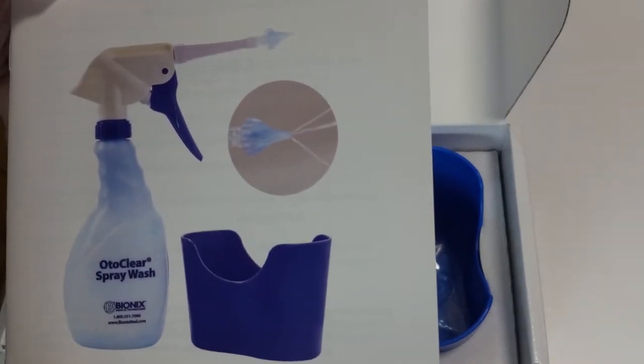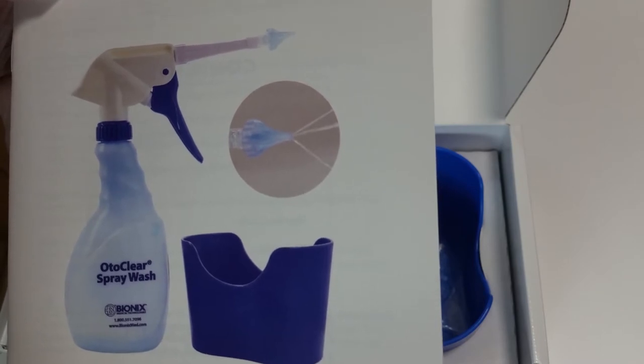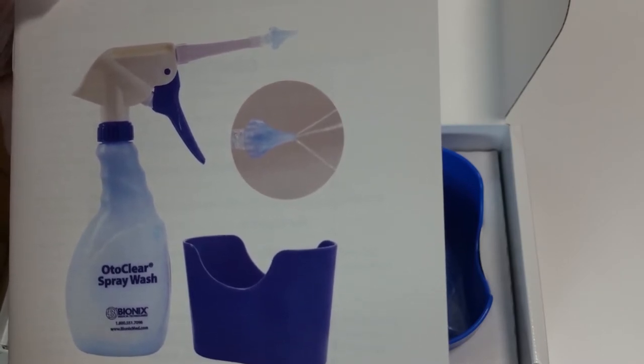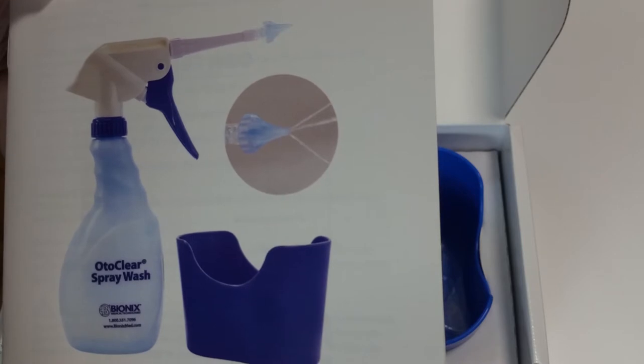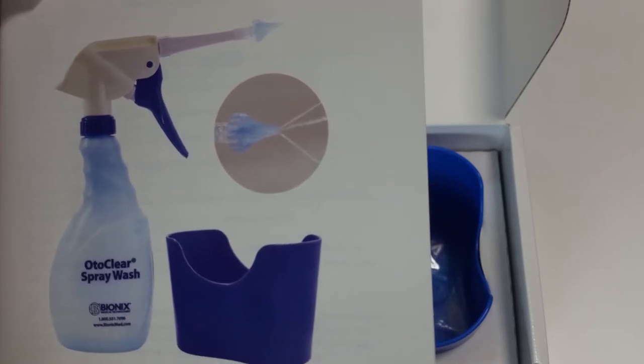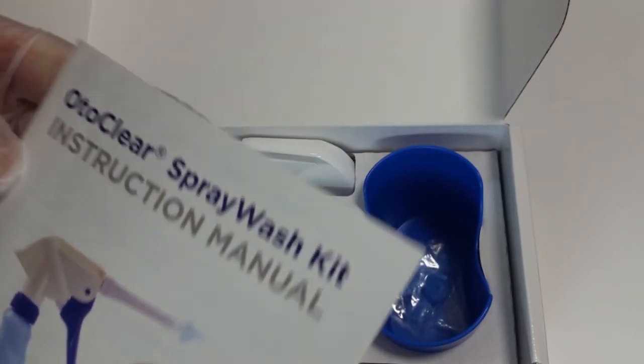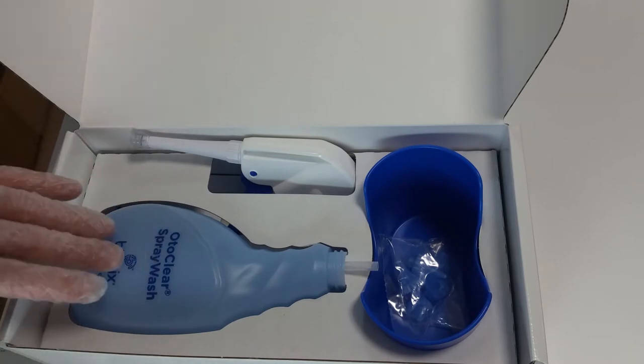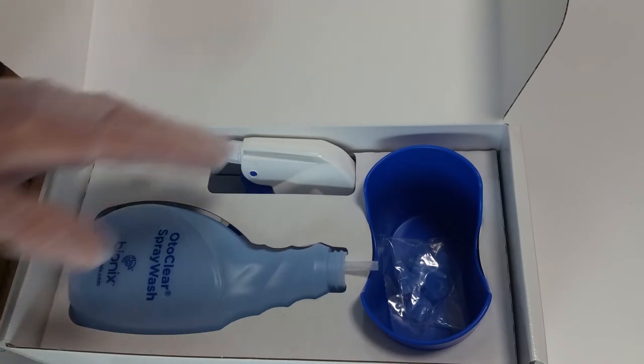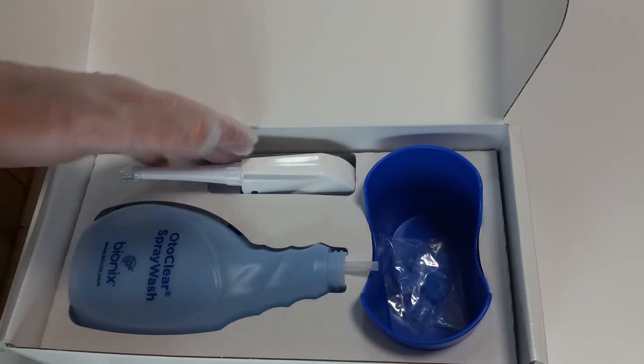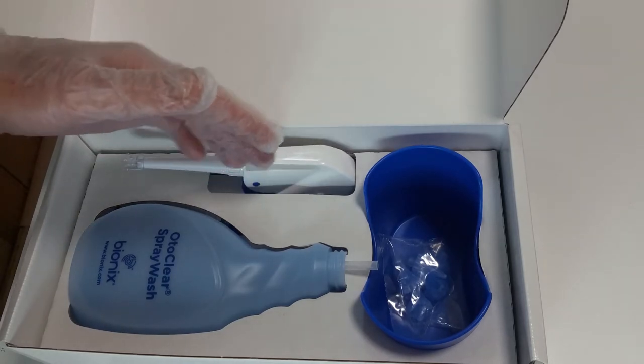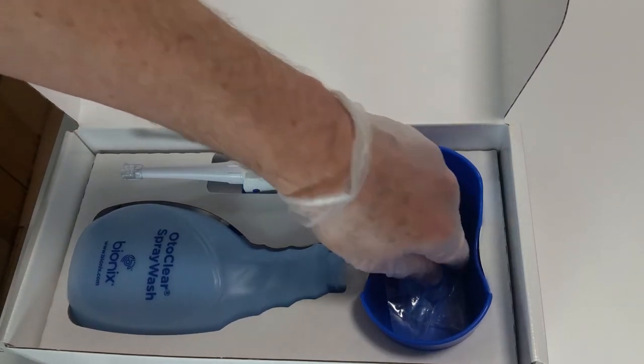It also shows a good picture of the wash bottle setup and the spray wash tips spraying water out. There's the wash bottle, the spray wash head, the collection basin, and of course, the tips.